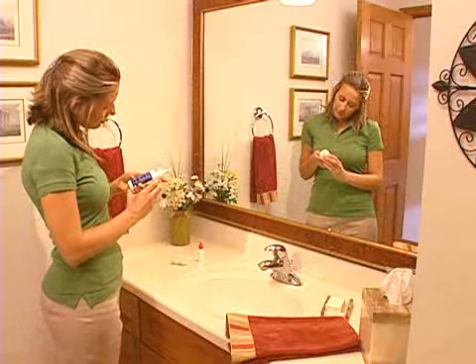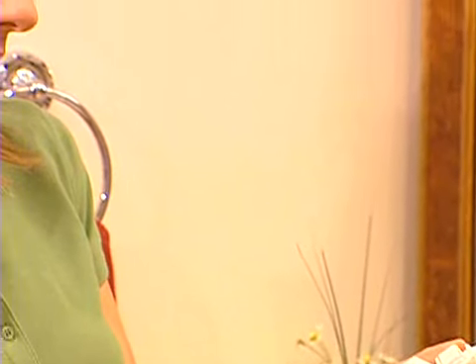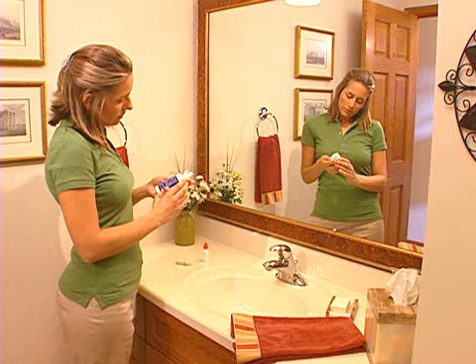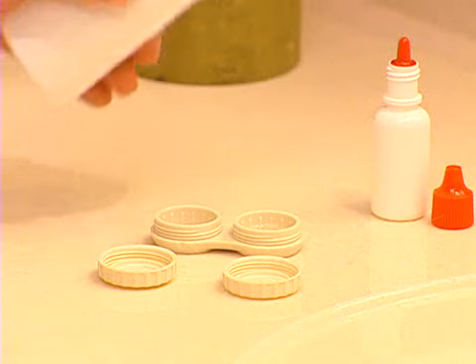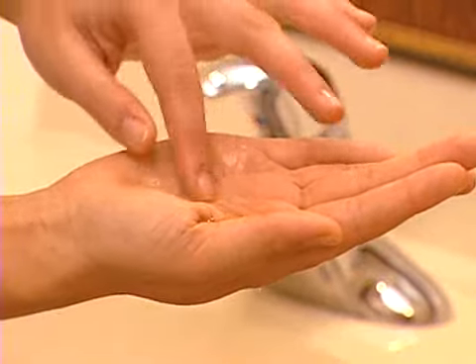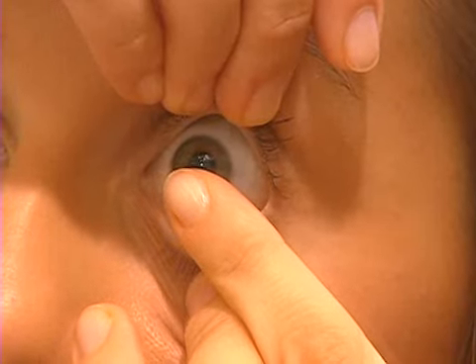Applying and removing GP contact lenses is easy, and all it takes is a little practice to become an expert. But there's another element to GP lens wear that's even more important for your success: caring for your contact lenses. Precisely following your contact lens professional's instructions on how to care for your contact lenses can mean the difference between success and failure. Each step is designed to perform a specific task that will make your contact lens wearing safer and more comfortable.